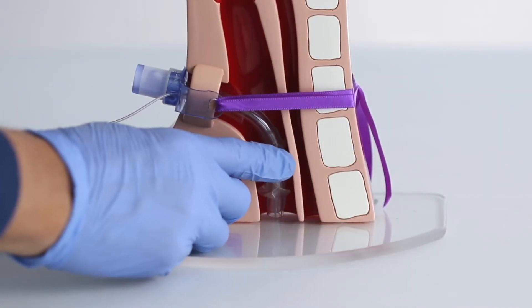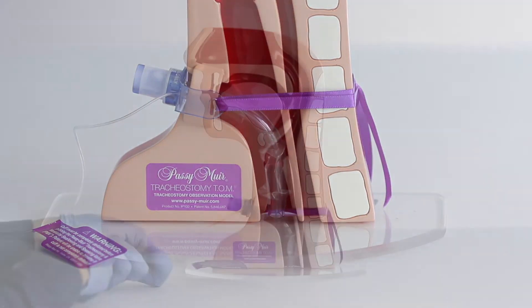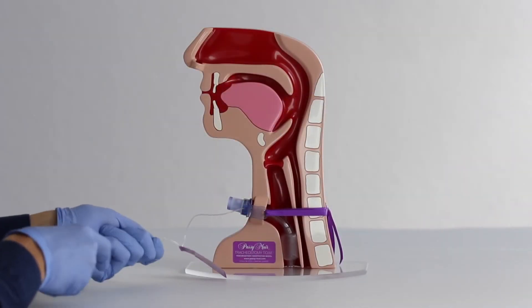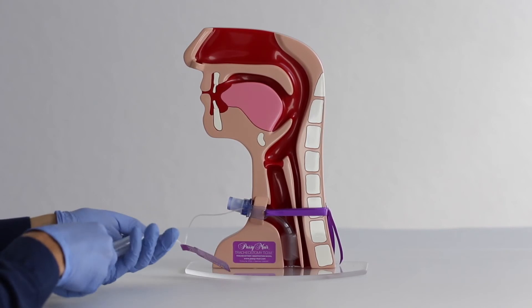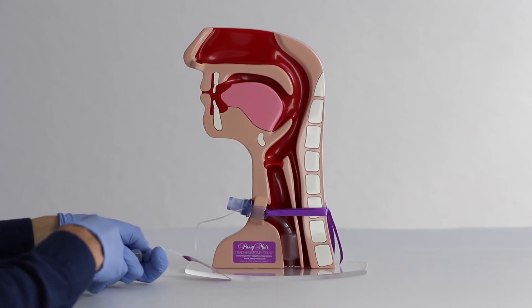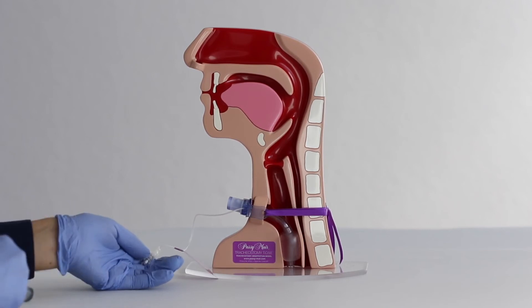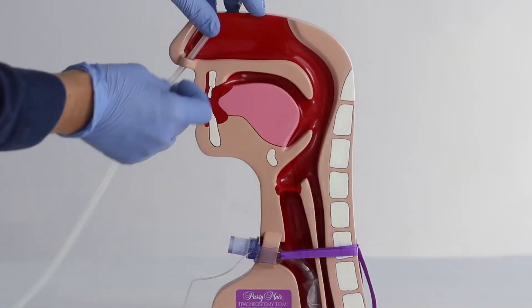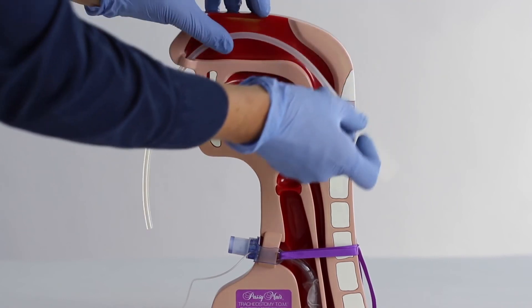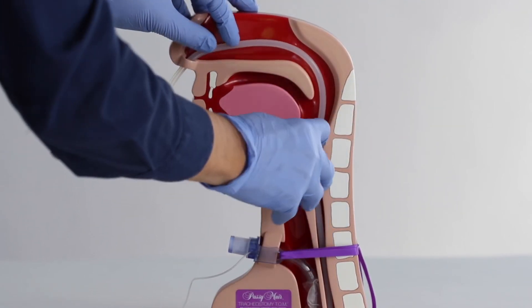This flexible wall is used to demonstrate the dangers of cuff overinflation. Notice the impingement on the posterior tracheoesophageal wall. TrachTOM also allows illustration of the placement of a nasogastric tube into the esophagus for nutritional needs.